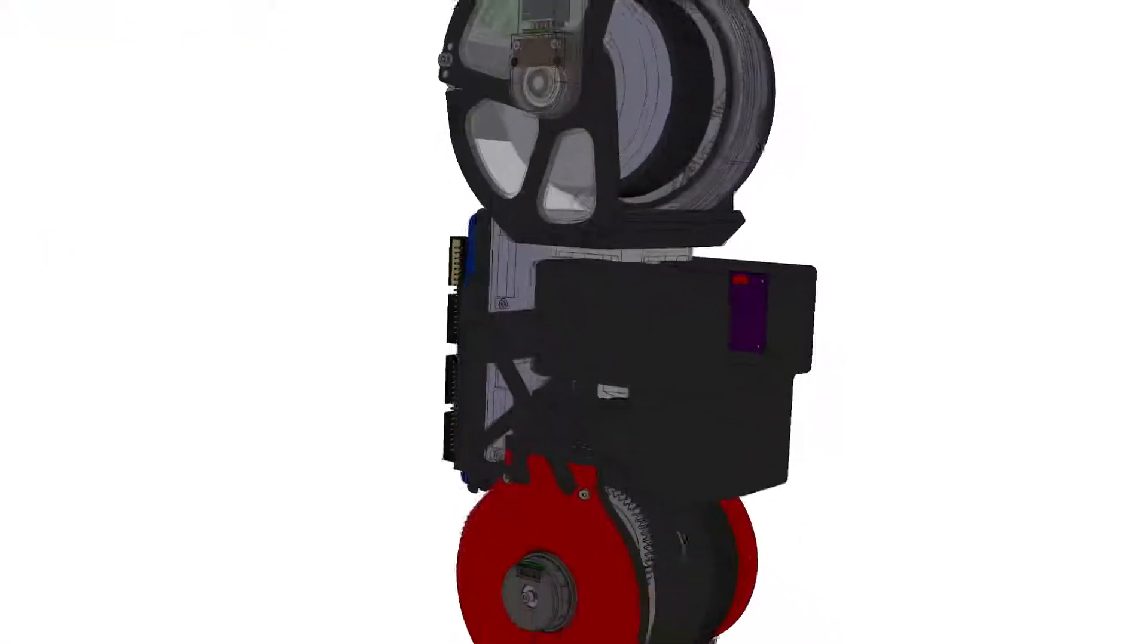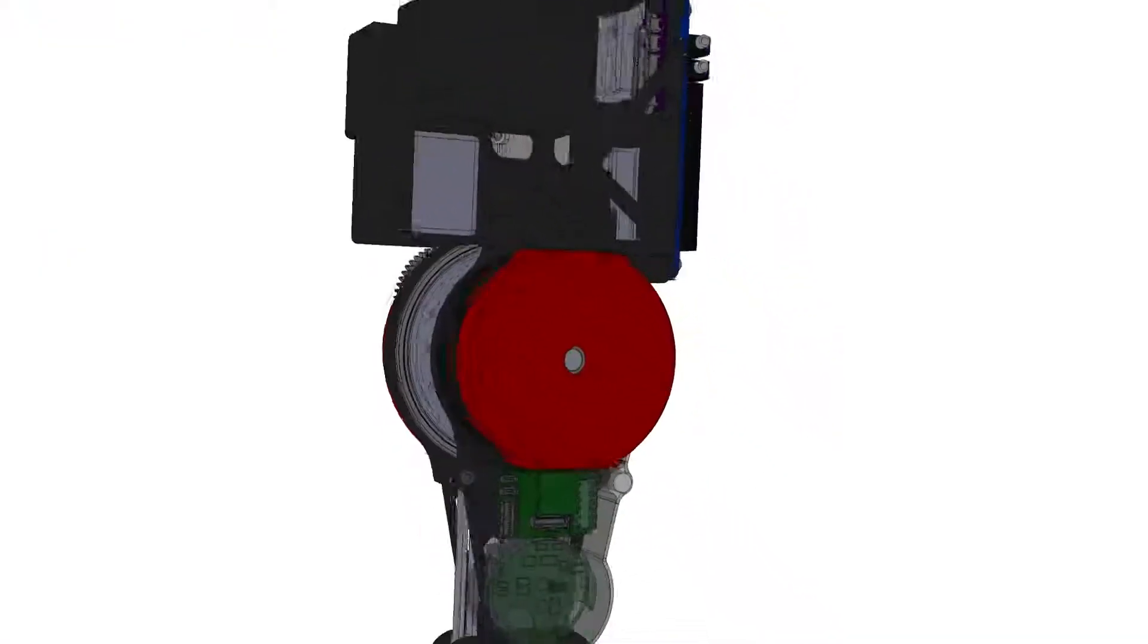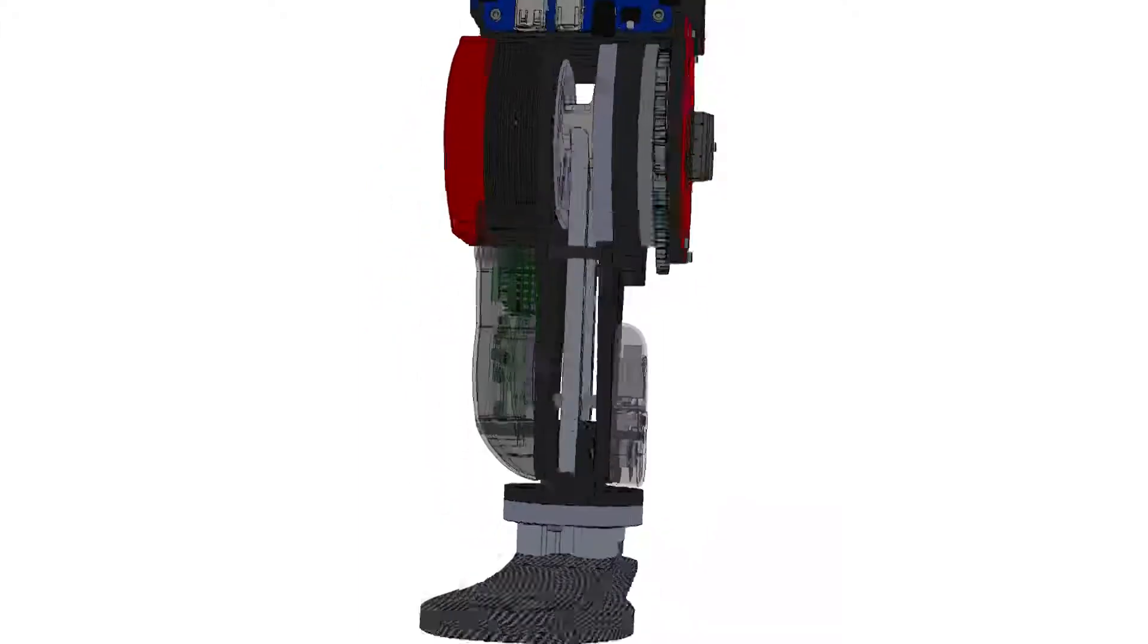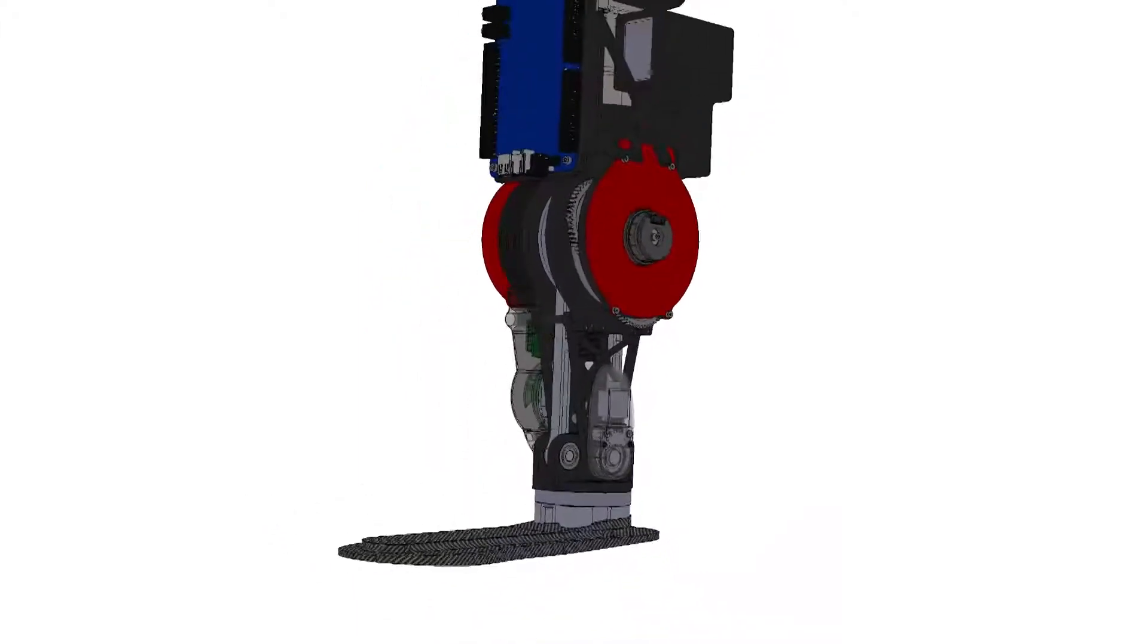Many current powered prostheses use non-back-drivable actuators, which consist of high-speed and low-torque motors coupled with high-ratio transmissions.